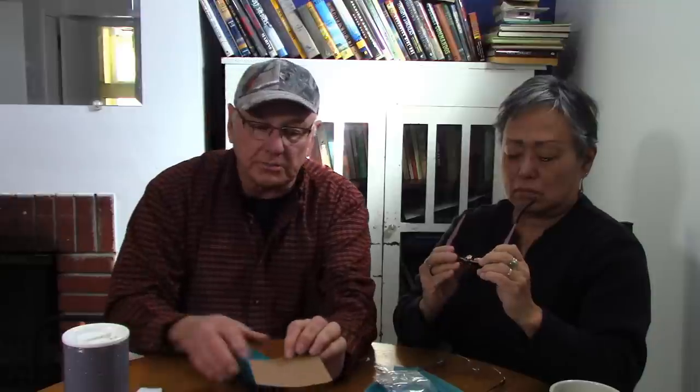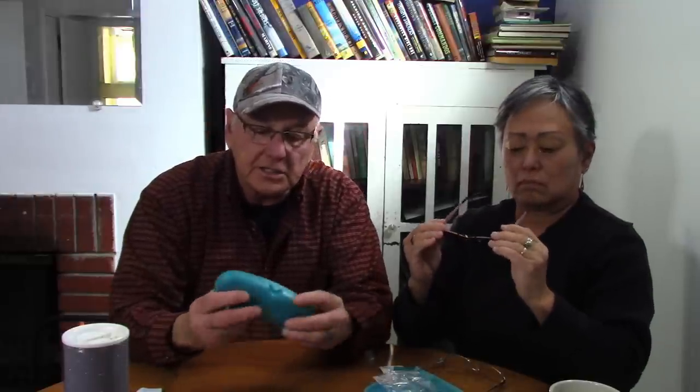Same thing as hers - there's a little piece of cardboard in there for stiffness. I didn't get the extra clip-ons. I'm a little nervous about mine because of my astigmatism, so we'll just have to see. I already have prescription sunglasses that are still working for me. Okay, do I look incognito? Hey, you look pretty cool! They fit perfectly.